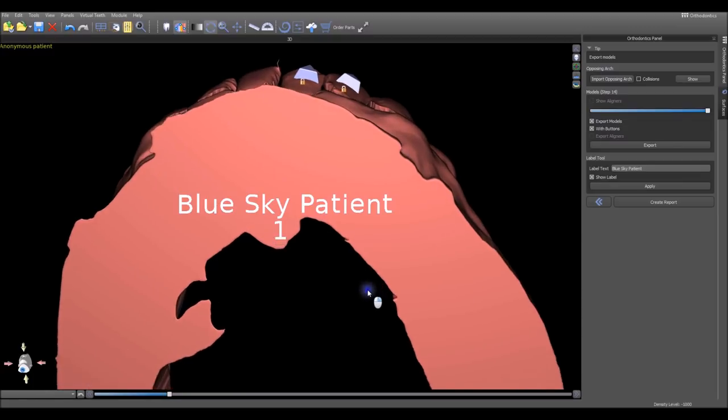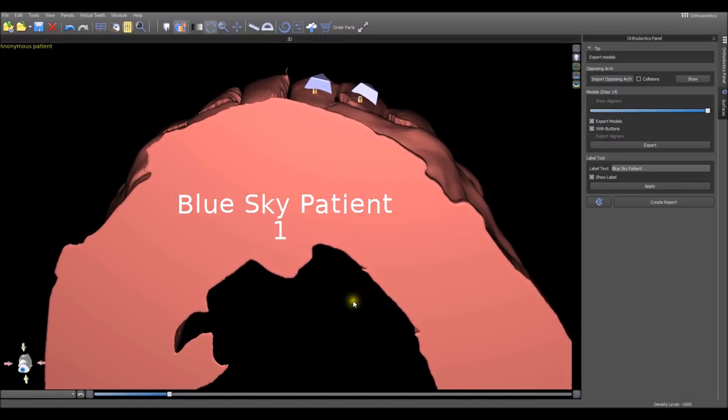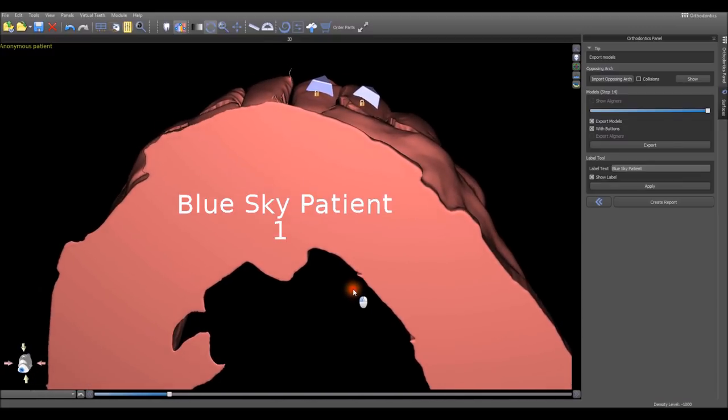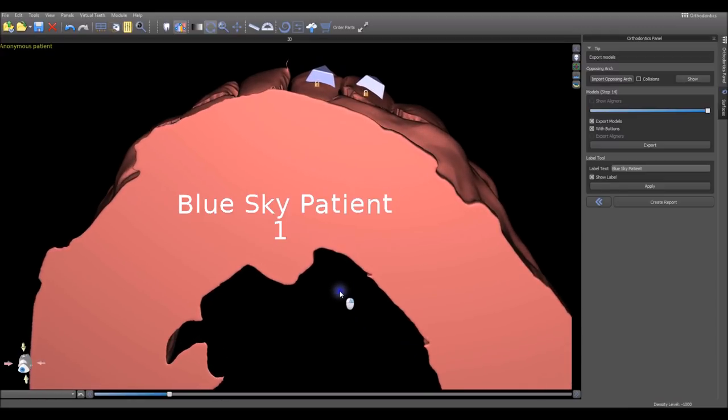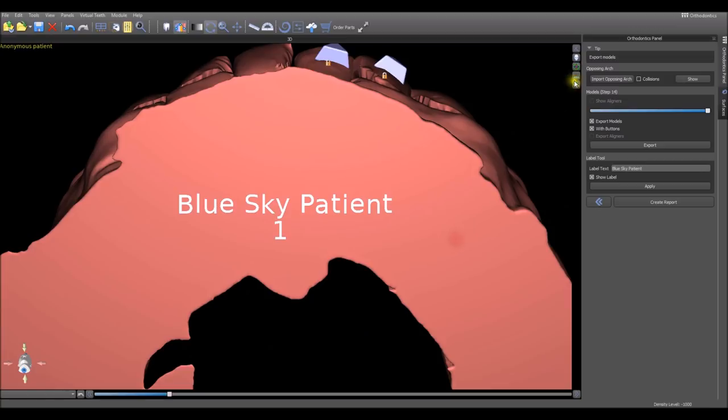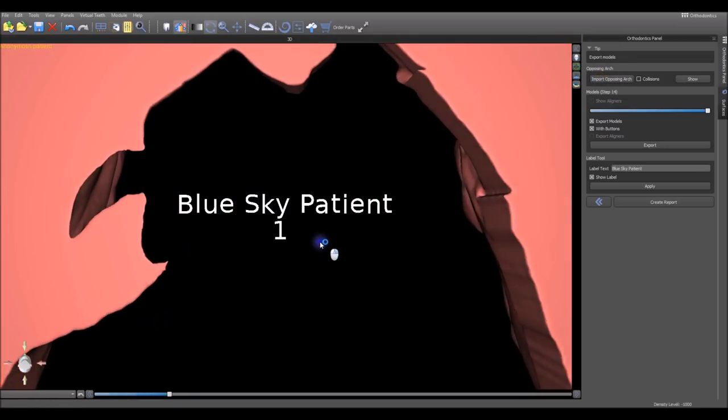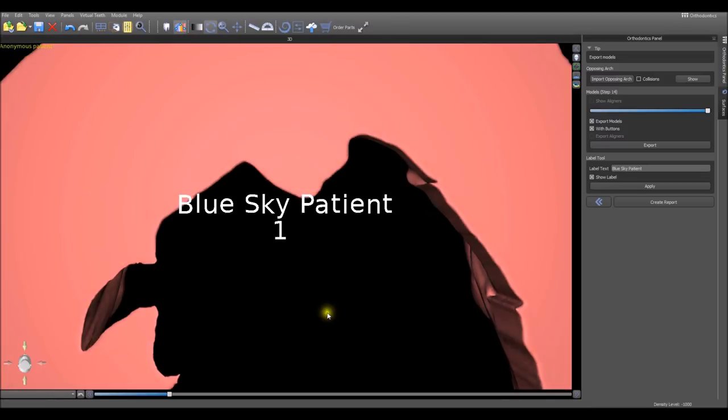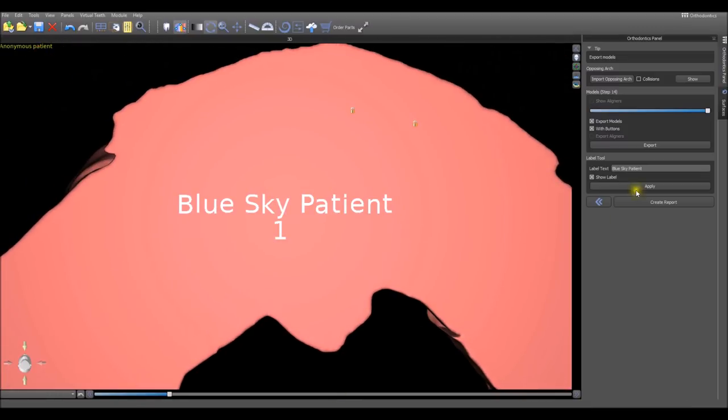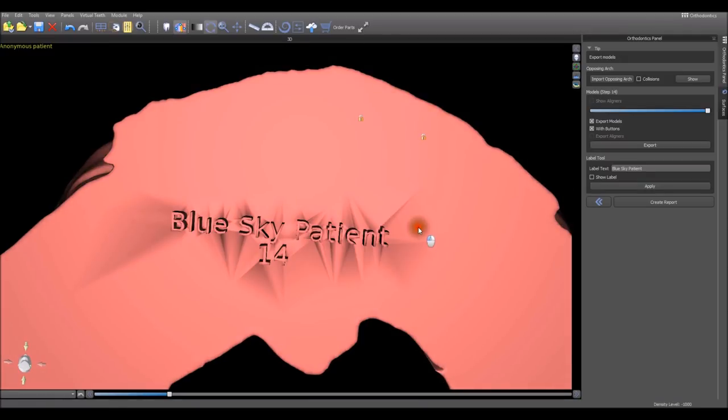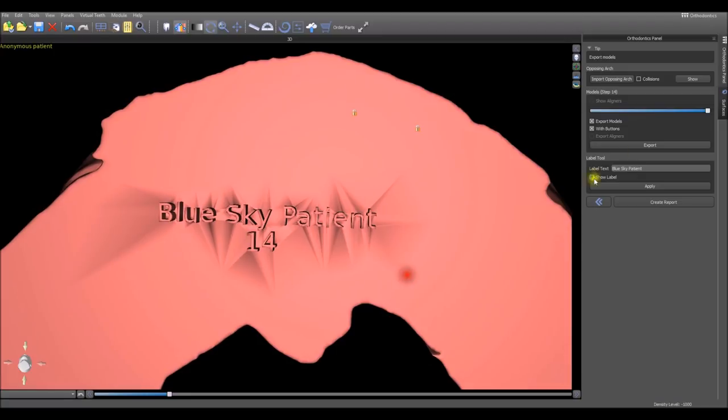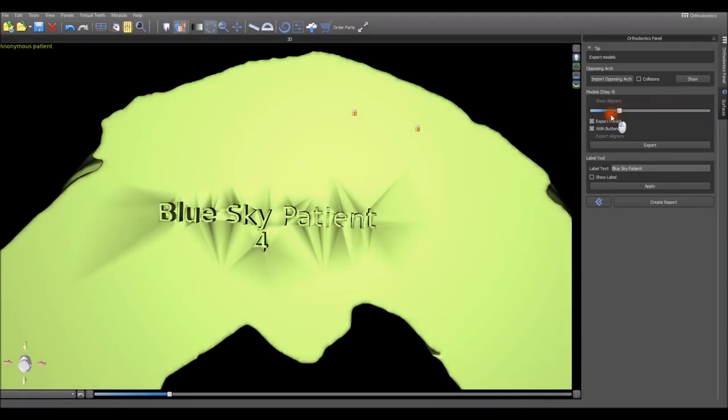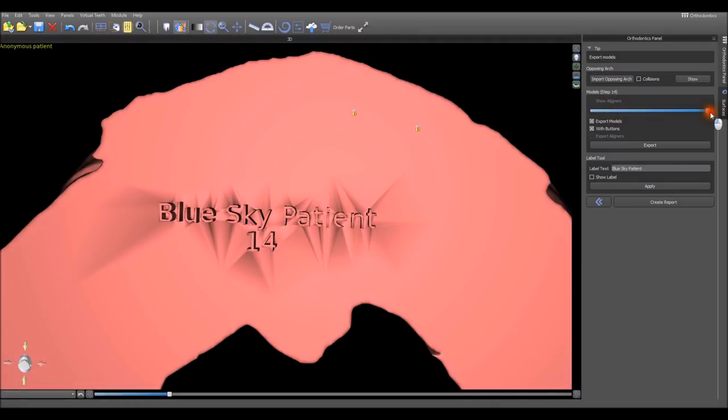In order to position the label, we use our mouse to rotate with the left mouse button and the right mouse button to zoom in and out to position the label how we want. We can also use the options here to rotate the models. Once we have the proper positioning, we press the apply button. The software has applied the label to the model and as we run through the steps we can see that the patient's name is there and the step number is being embossed directly onto the model.